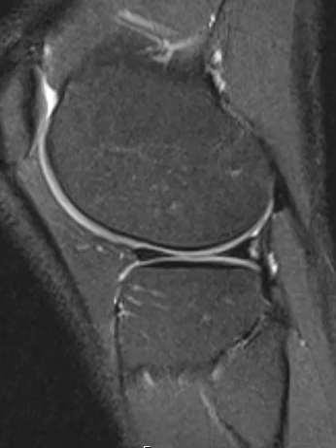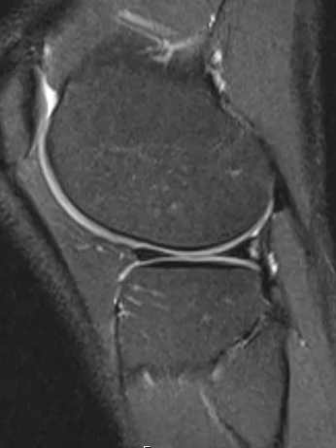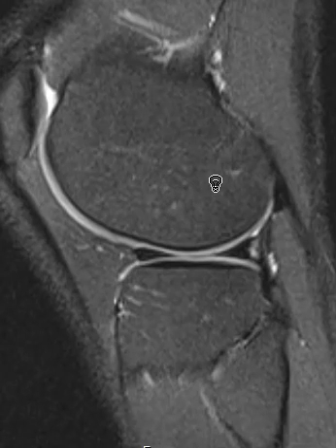Hello, this is Dr. Gay, and this is a quick look at a tear of a meniscus — just a bread-and-butter type tear, and a good example of one.